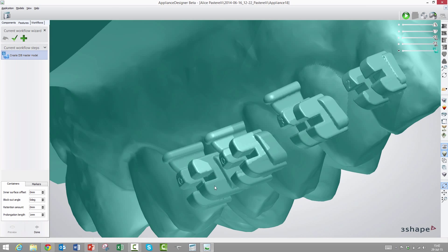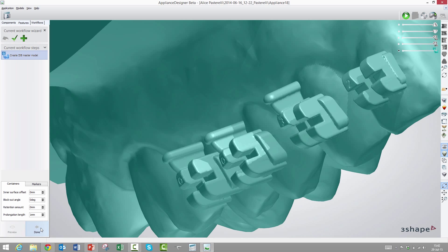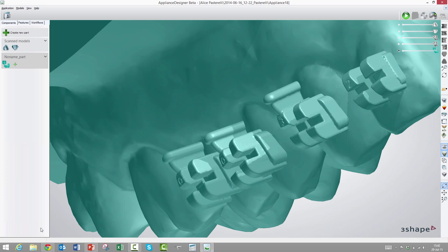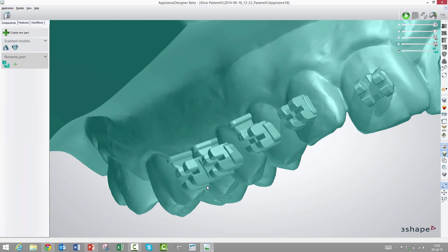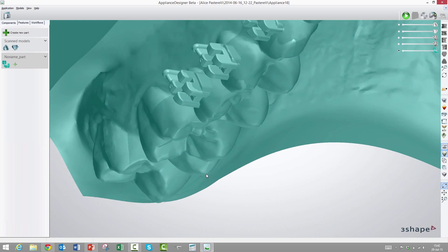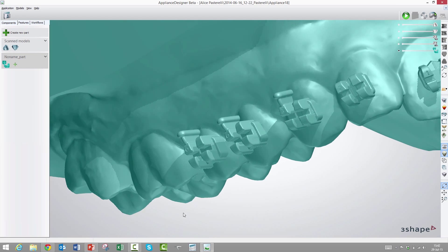That is how you would make this model with containers. The really nice part is that now you don't have to waste time to protect the hooks and wings with silicon drops. You thermoform on top of this and it's ready to insert the brackets right away. Really easy to use and understand.